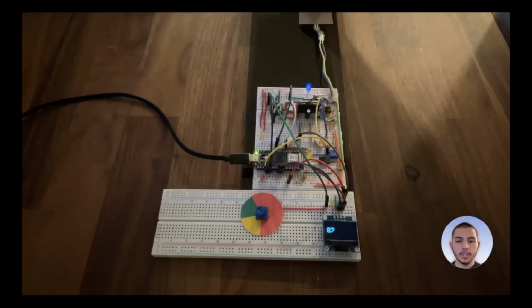This is a demonstration of the gyroscope that exists within our device. Because we have an Arduino microcontroller that contains a 9-axis inertial measurement unit, we can actually measure the angle at which the user's inhaler is going to be held. Therefore, we can give them feedback that allows them to know if they were holding their inhaler at the correct position to actually administer their medication correctly.